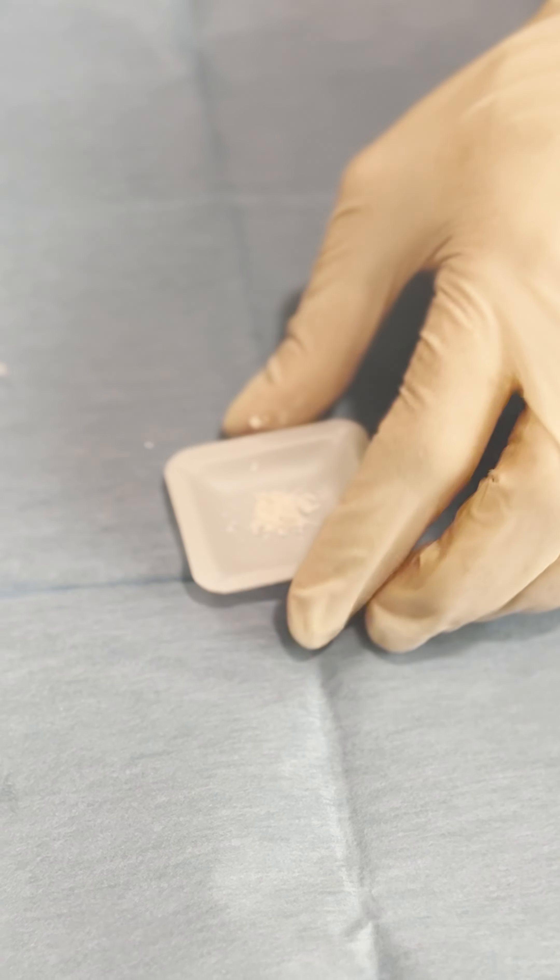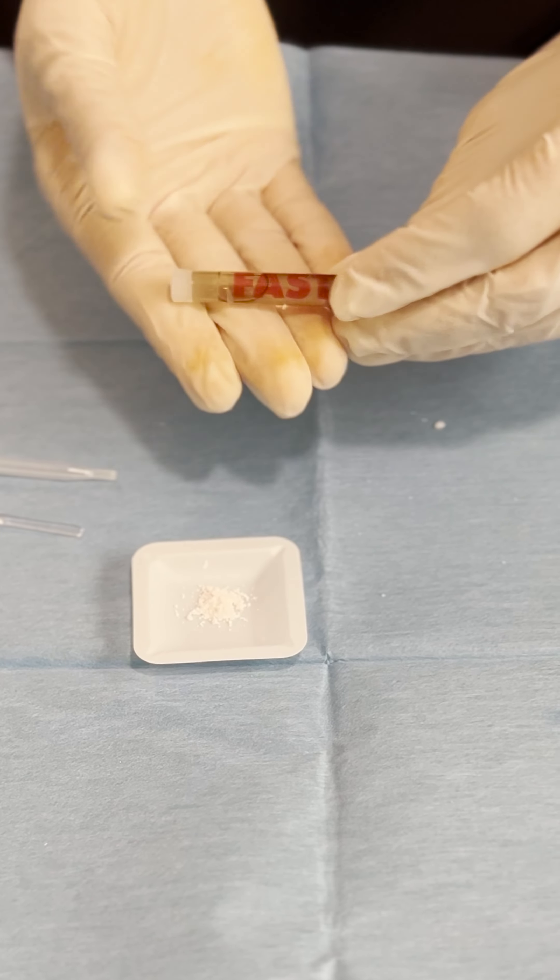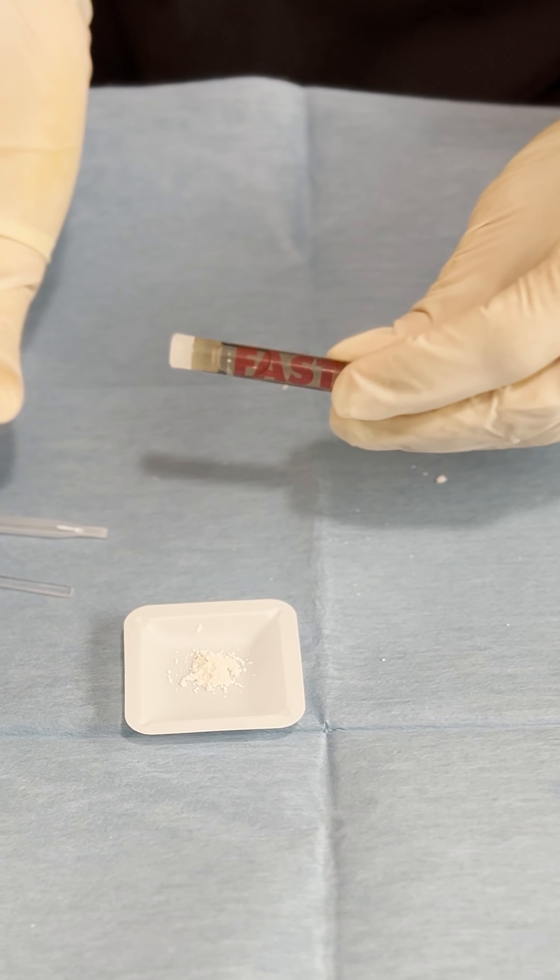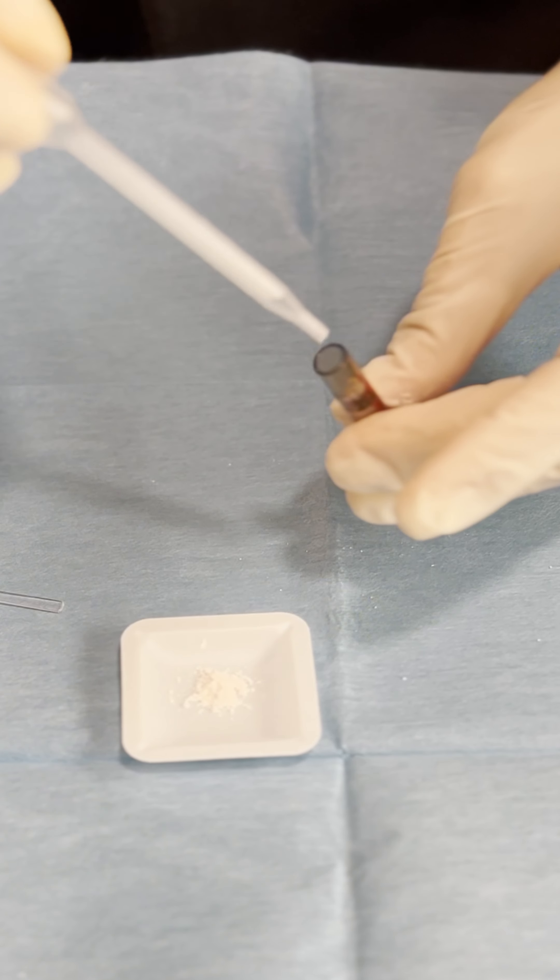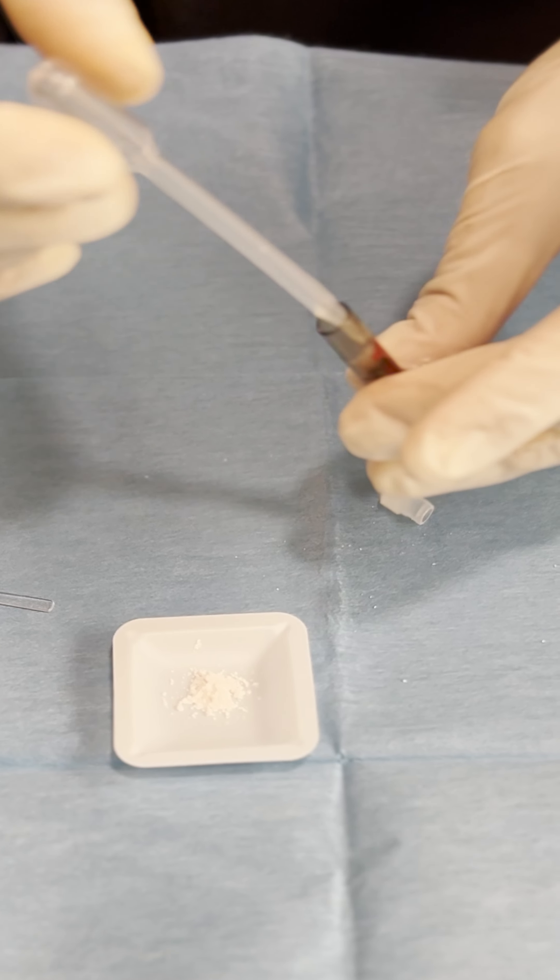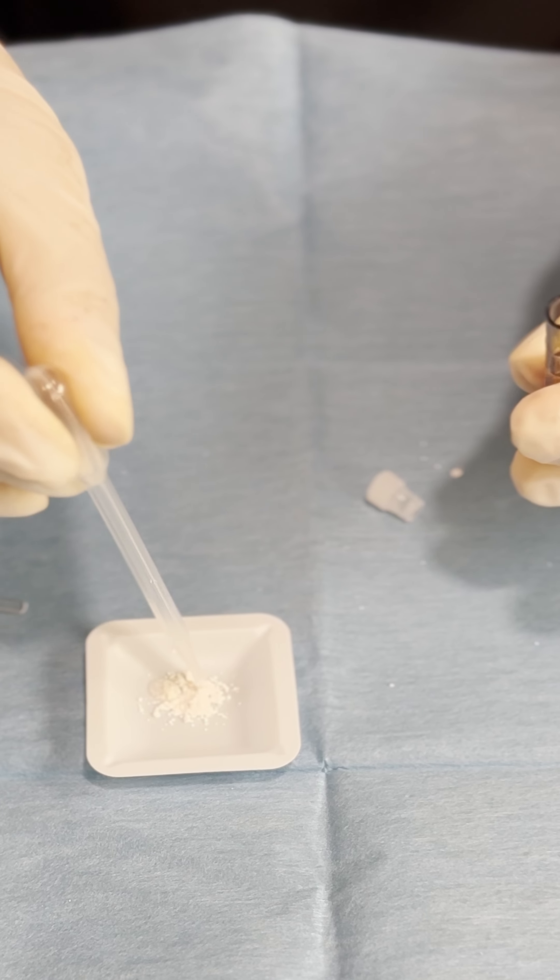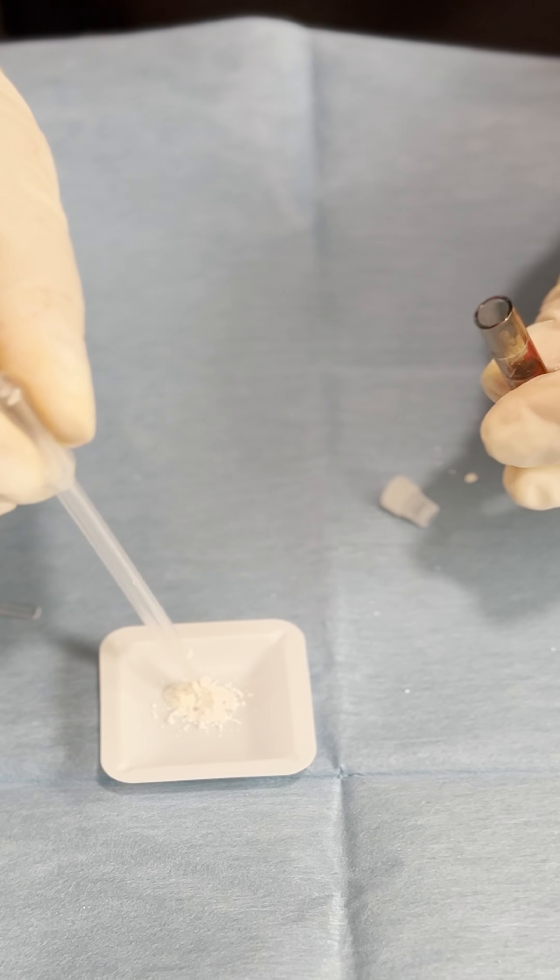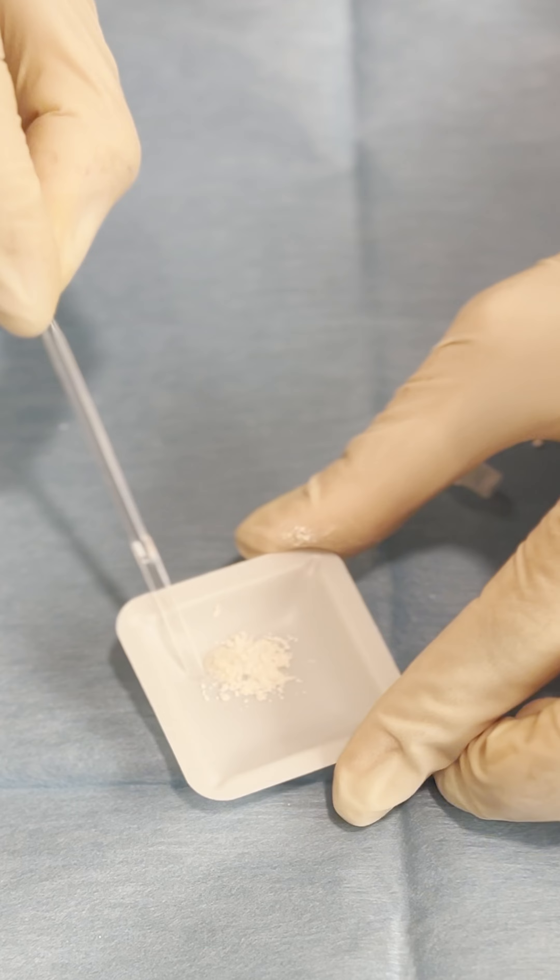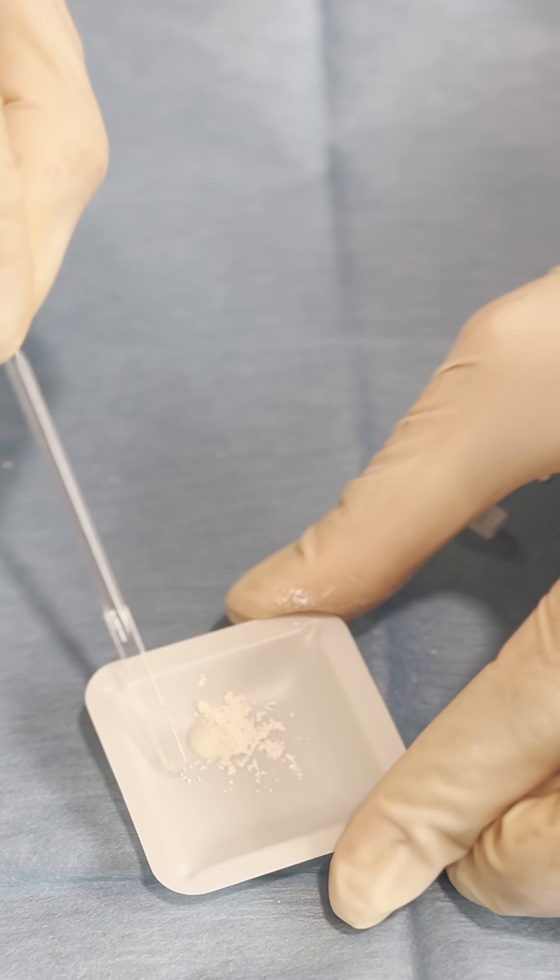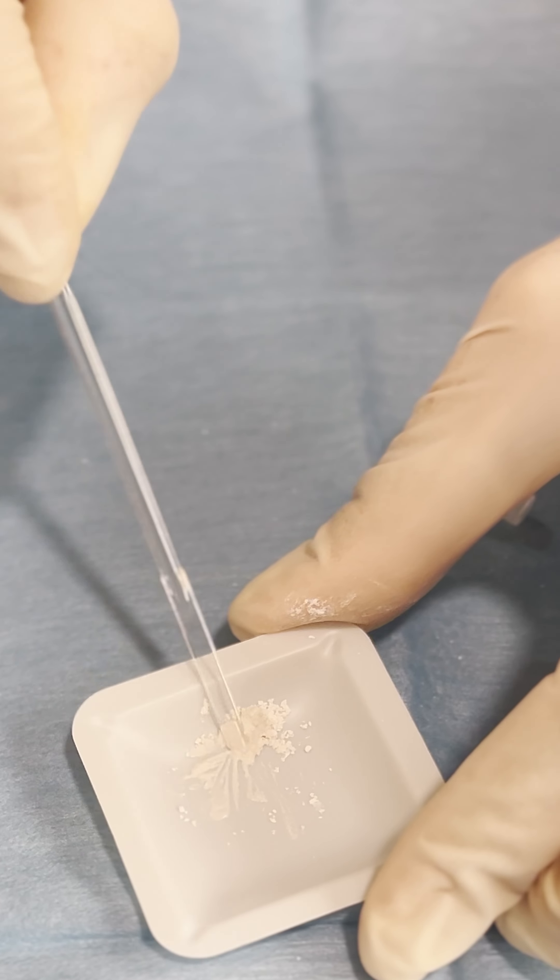We use the fast and I told you it's like potassium ions that help the hardening process to speed up, that's why it's called fast. Here when we mix it of course we have to be careful with how much liquid we want to place because we don't want it very liquid. We want it like in form of a little kind of cement and we want it to adapt so also here we have the liquid and we have to incorporate all of the powder.